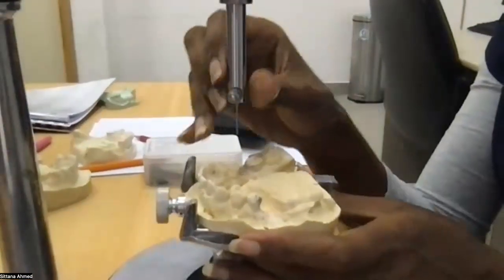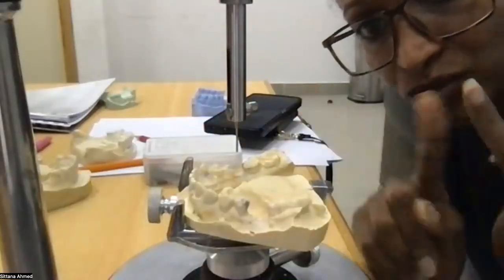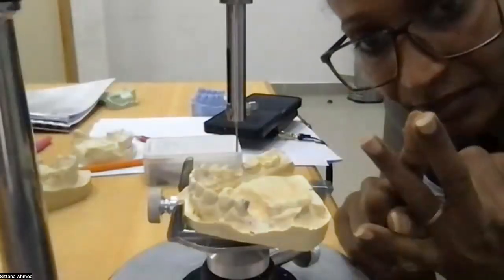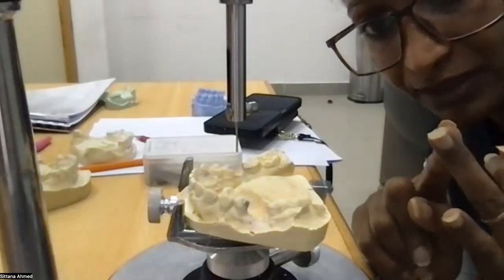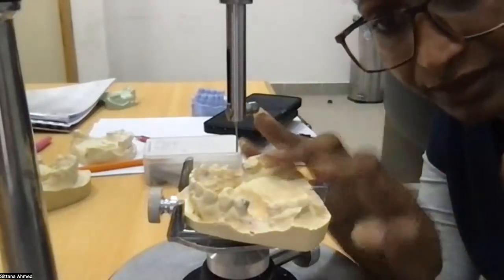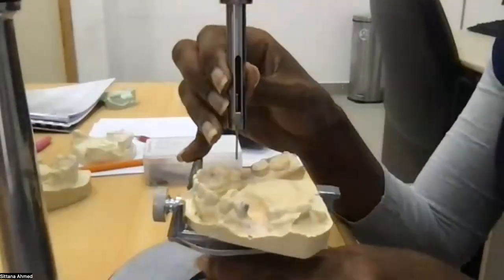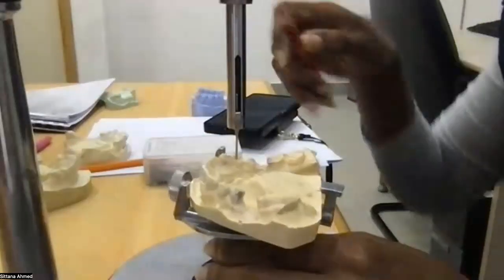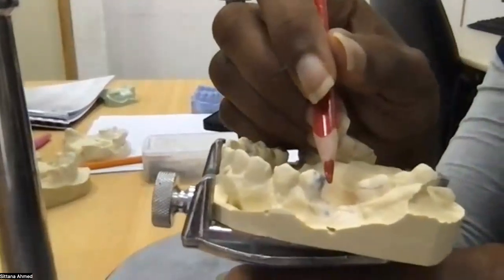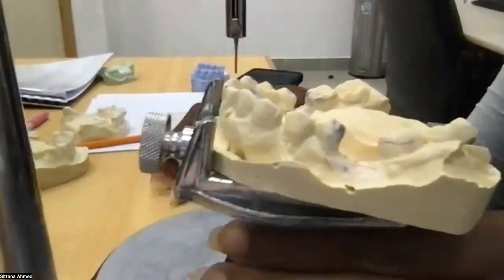The first thing we need to analyze, there are 2 main things we are gonna analyze. So zero tilt, proximal plate, and undercut for clasp. Again, zero tilt, proximal plate, and undercut of the cast. Zero tilt, we did it. Undercut, proximal for the guide planes. So we know now that here and here are the areas for the guide planes.